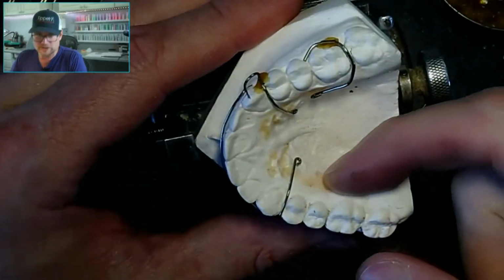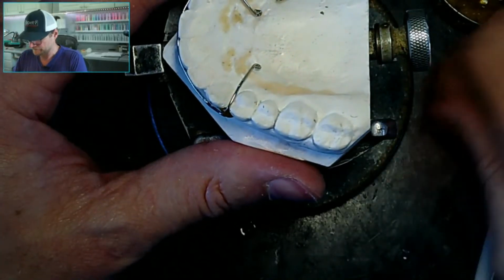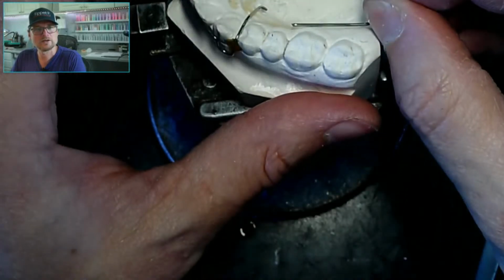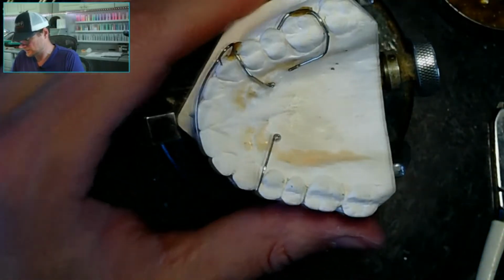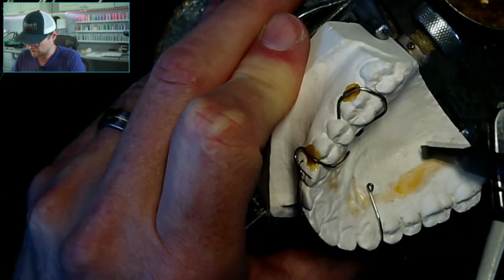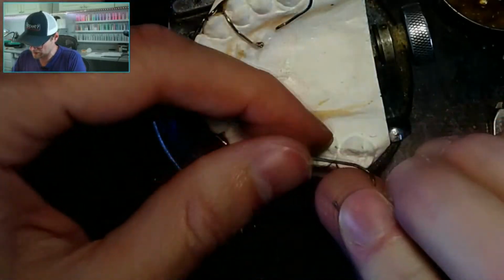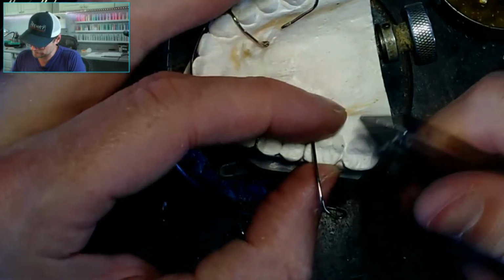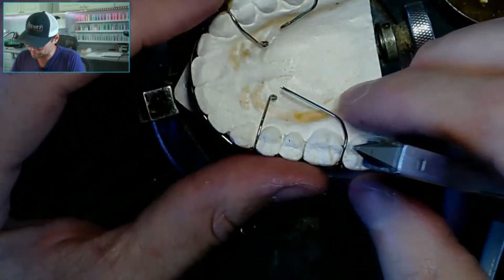Because there's a big undercut here. I don't know if you can see that. I mean, this wire might actually just disappear below it. I can't see it. I'm going to add a little bit more wax there. My wax tip's dirty. This model's like 20 years old. Still good. But I can see it's been through some rough times.